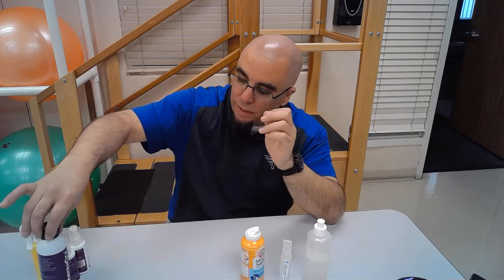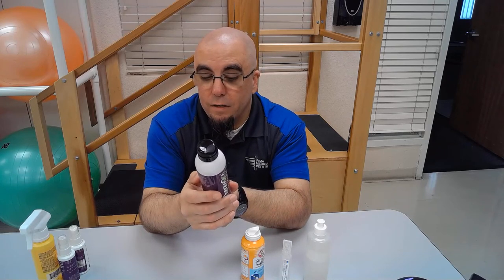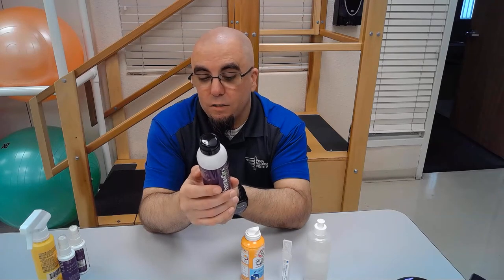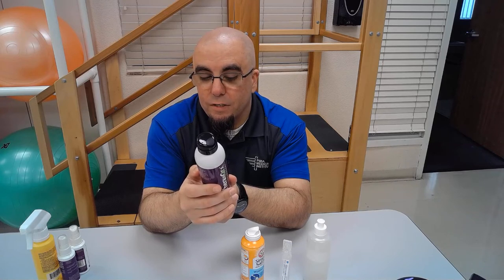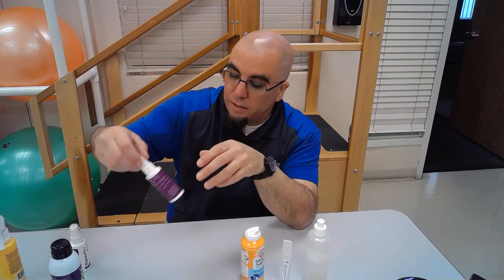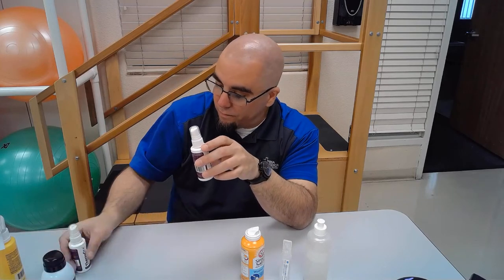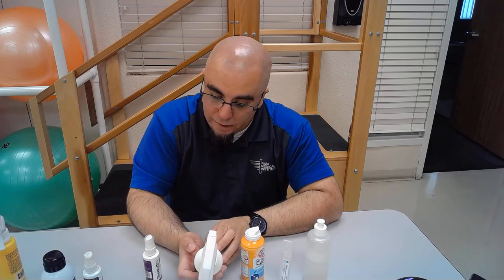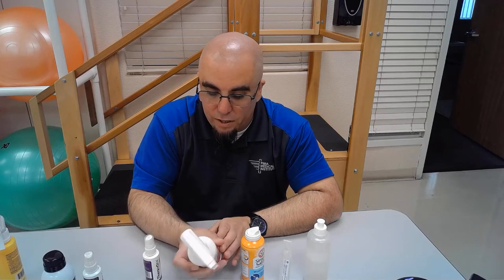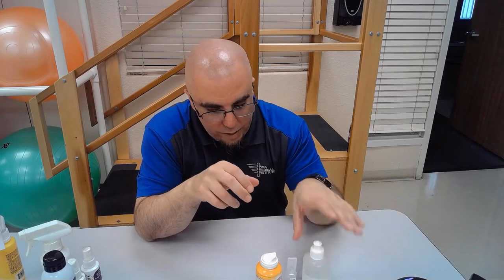I prefer simple saline, but again if your clinic uses specialty cleansers that's not necessarily bad — this one says it's totally body safe, low pH, non-cytotoxic. However, checking the ingredients, it contains colloidal silver and citrus grandis grapefruit extract — so it does have citric acid. Another one, Skintegrity, contains sorbic acid and lactic acid, so at least two forms of acid. Be careful when treating the wound area.